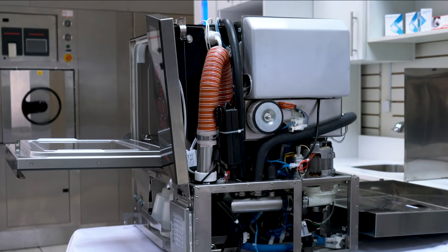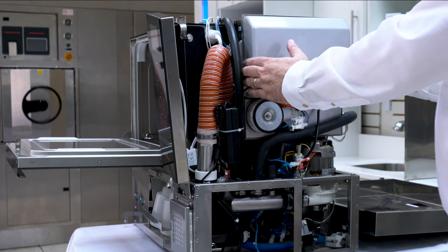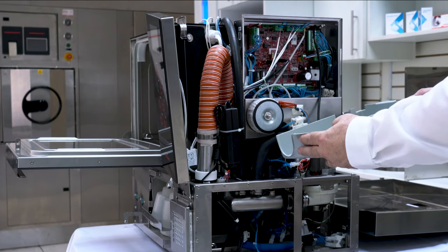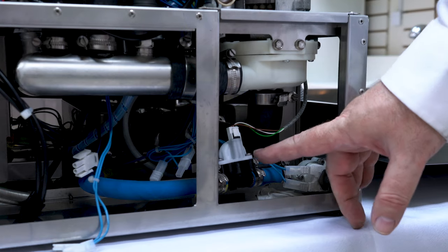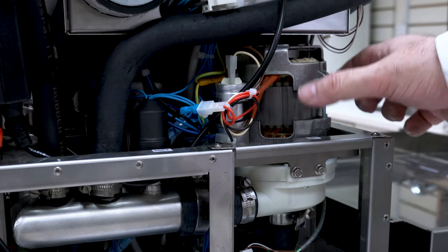Here we can see the electronics, the water sensor, this is the water pump water sensor.